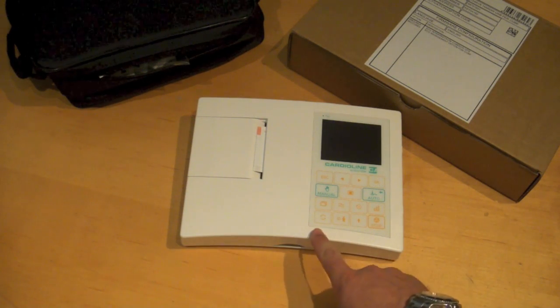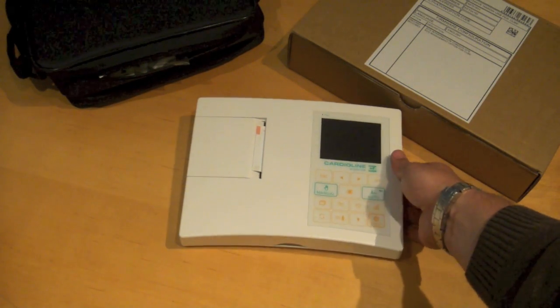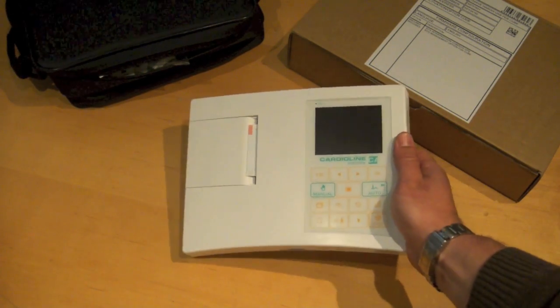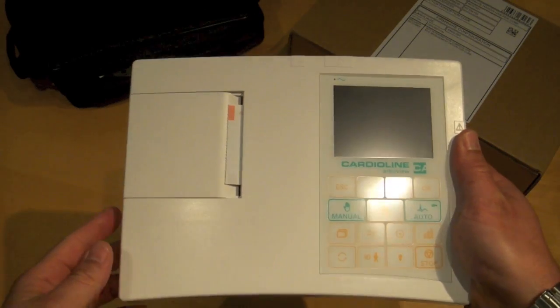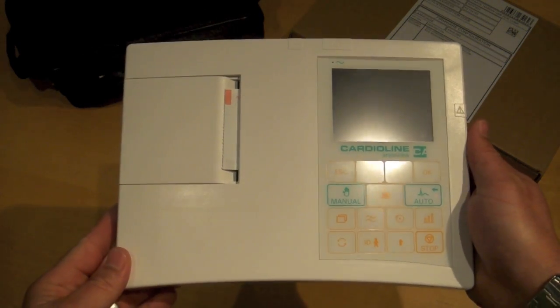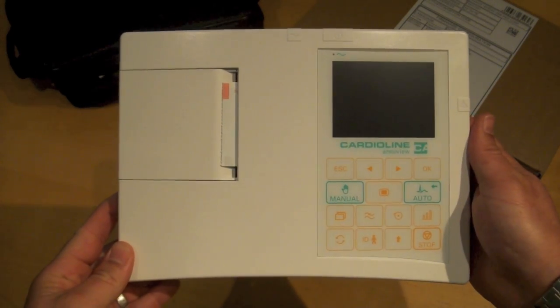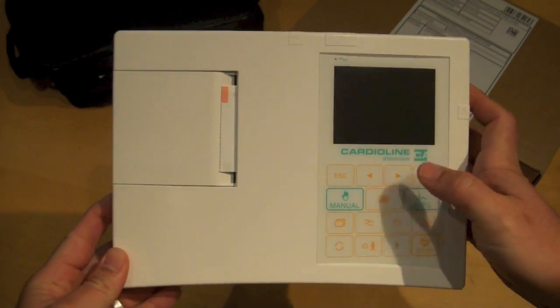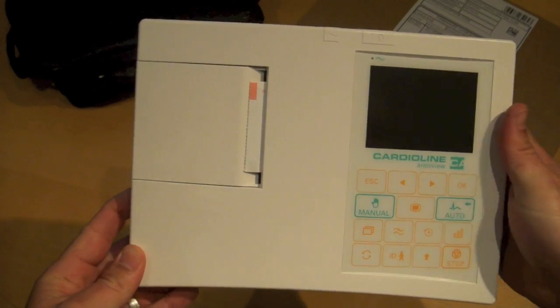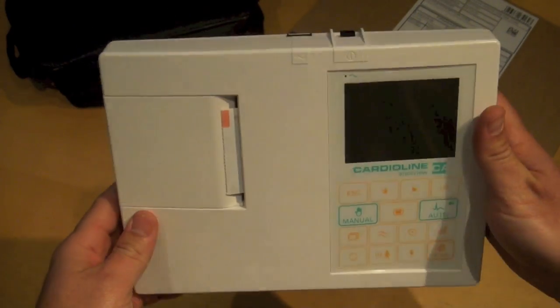You will notice that the machine is very small. It does not have a keyboard. It has a small keypad here, a very small printer.